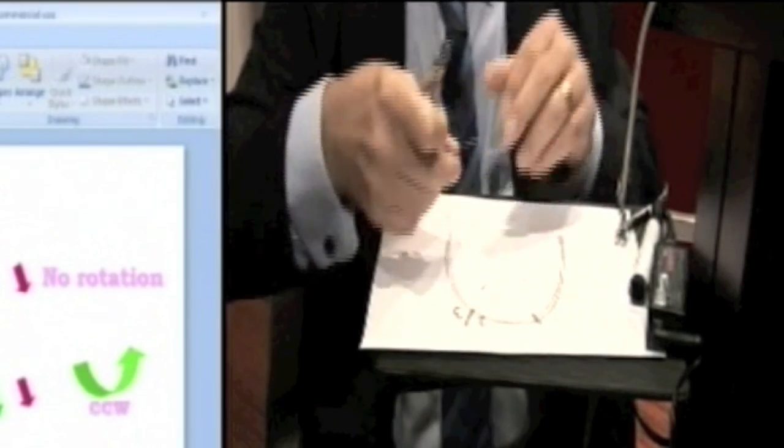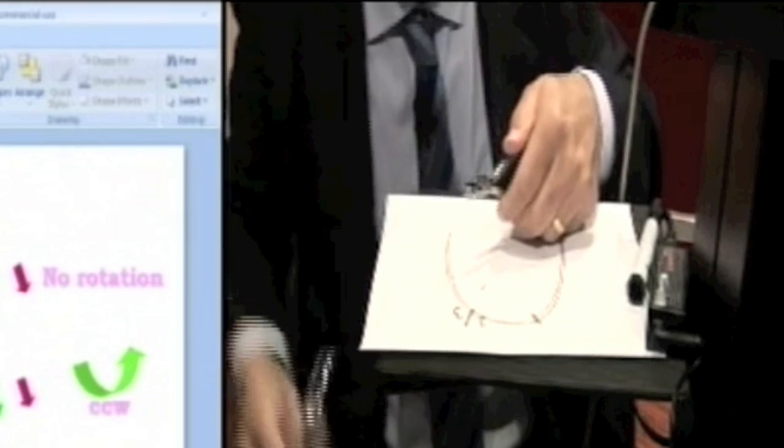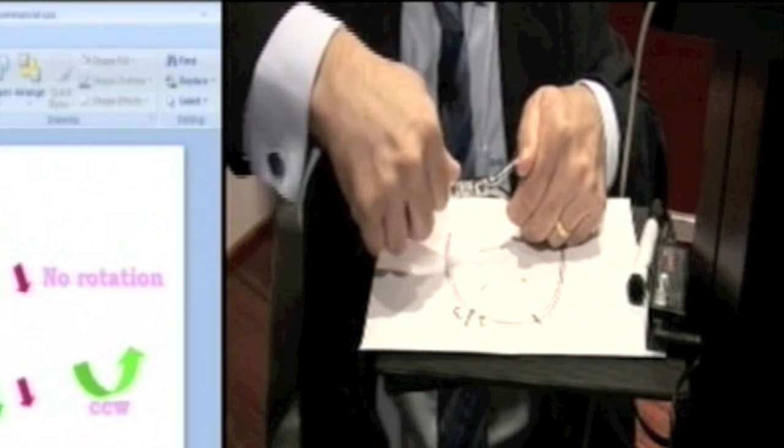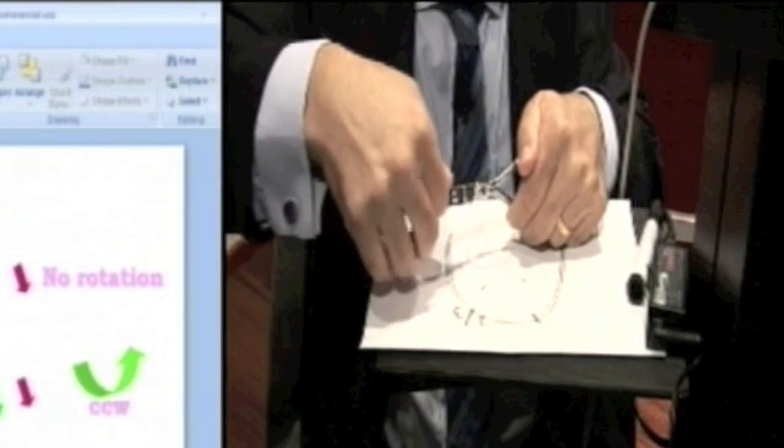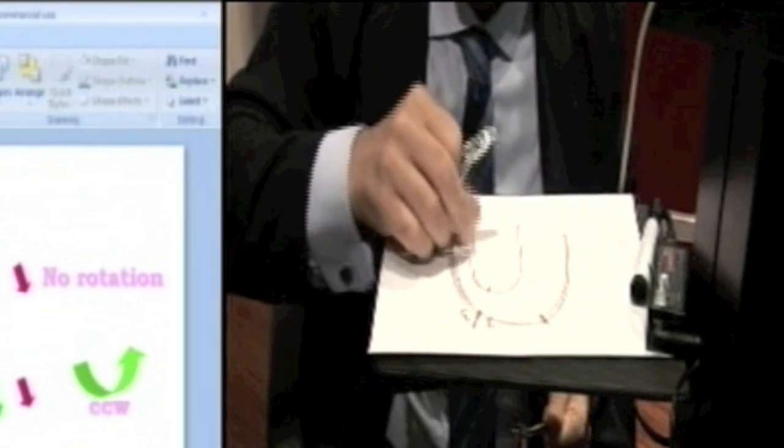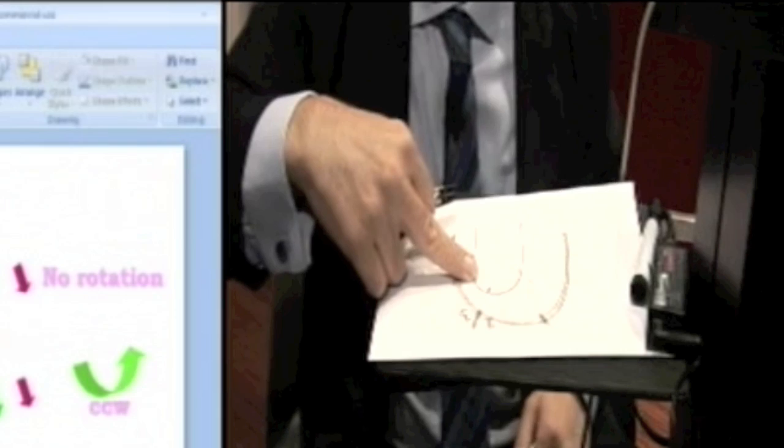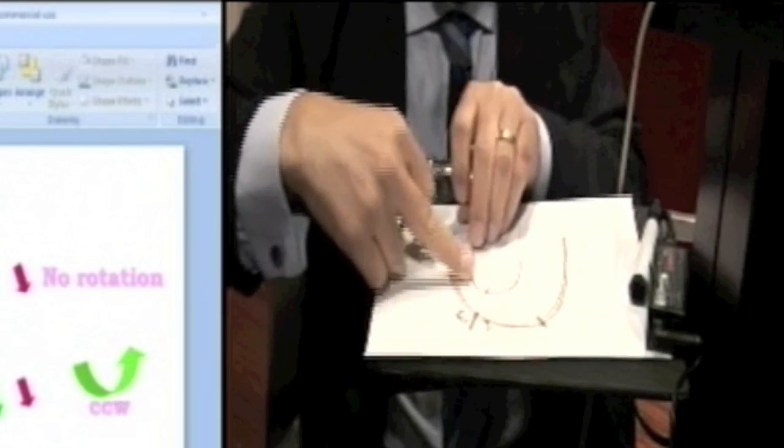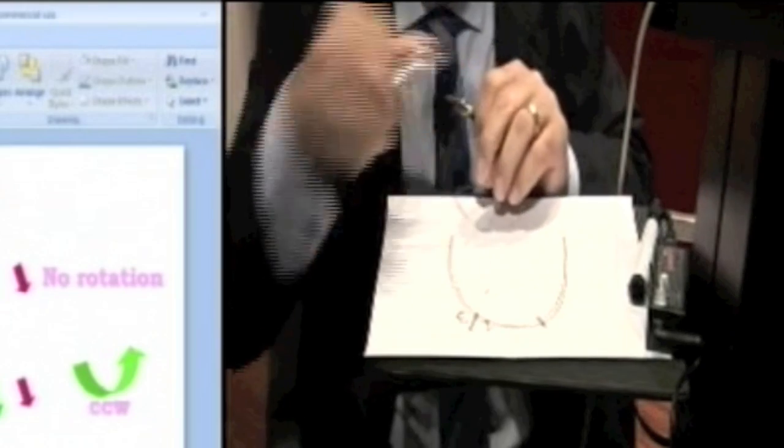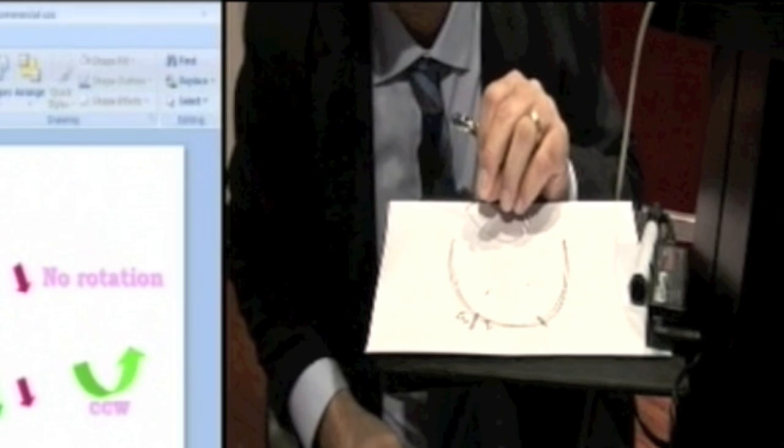Progressive torque will start on one side. This is with tweed torque pliers. It'll start on one side and you'll put in 20 degrees of torque. As you put in 20 degrees of torque, the next thing you should do is lie the wire flat and see if you introduced torque in the buccal segments. Here, you can see it's flat. Still zero torque in the buccal segment. Now, if you look at that goalpost, can you see how it's bent? 20 degrees.